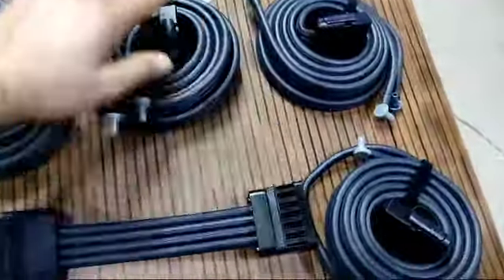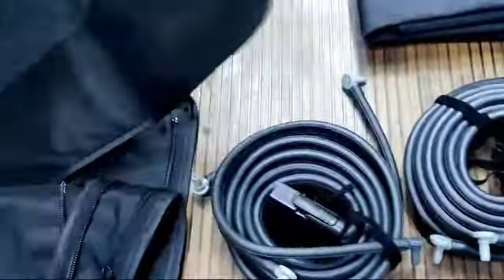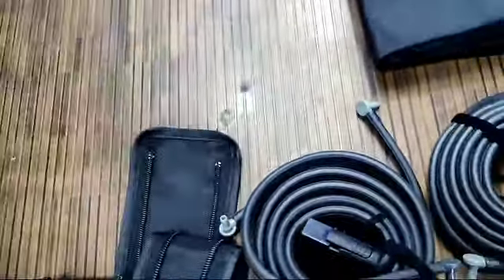These are all the connecting tubes that connect to the device. The connecting tubes get inserted into the ports. This is the waist attachment — the tube gets connected here, and then you can use the machine.